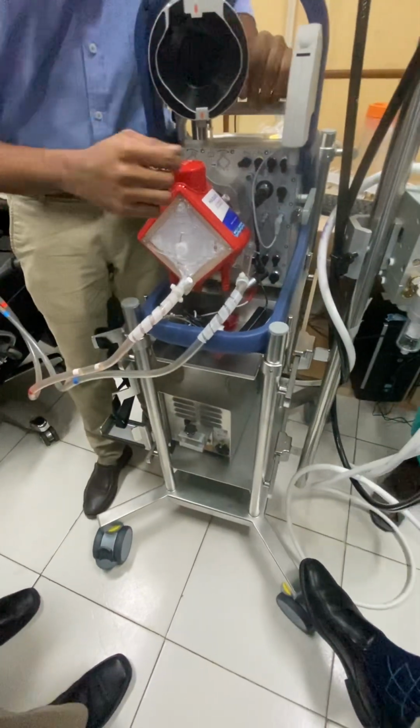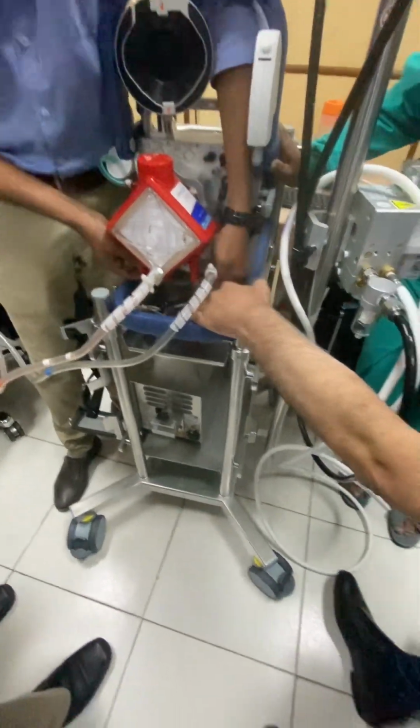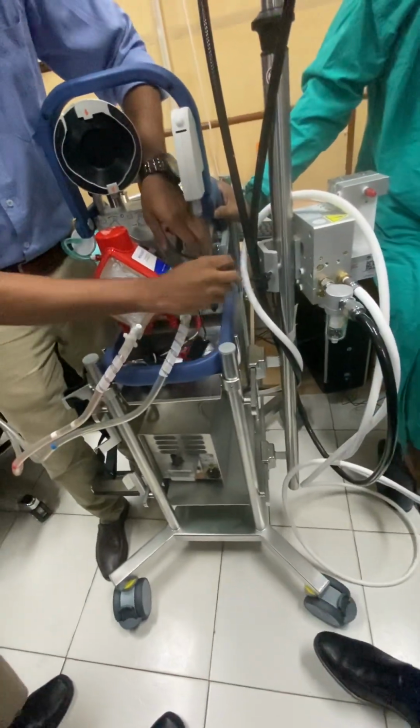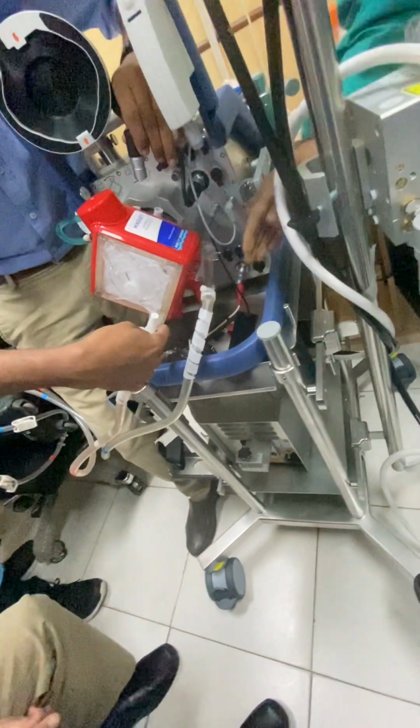So heater unit you have done. Other thing is now, हीटर यहाँ लगाया था ना आपने? यहाँ से नीचे। ये दोनों ठीक है लग गए। अच्छा ठीक। Now next thing is, as I said, this disposable has sensors inside.